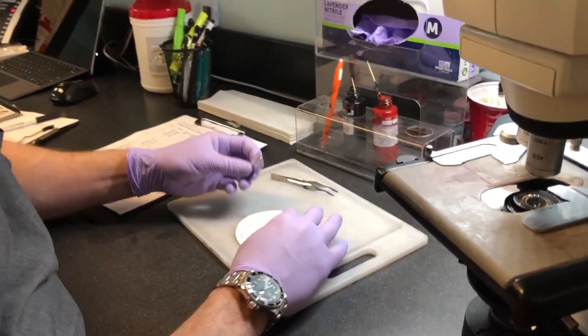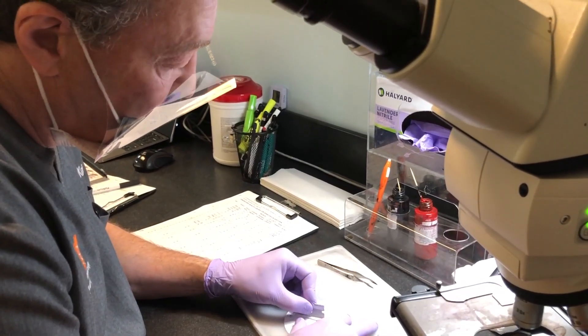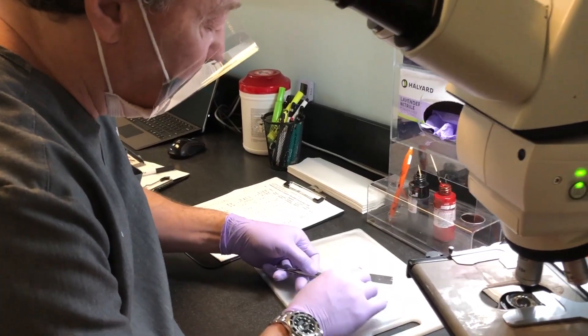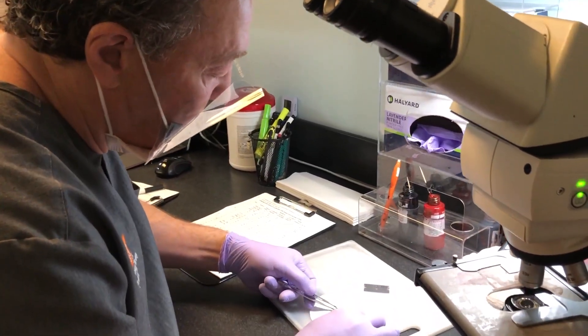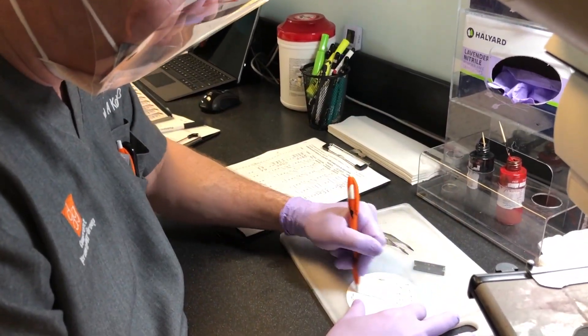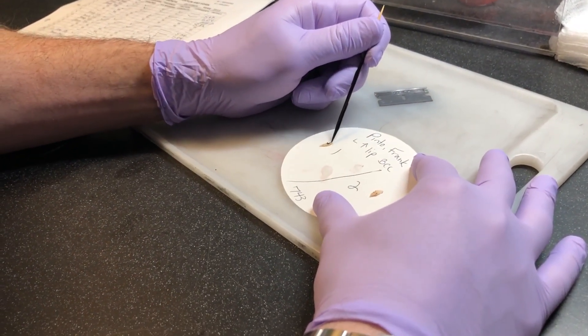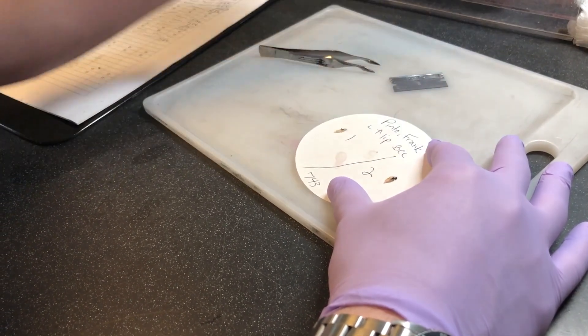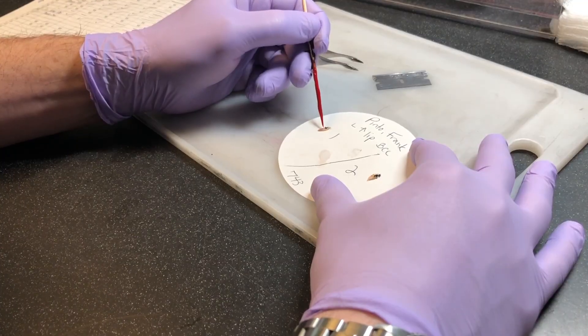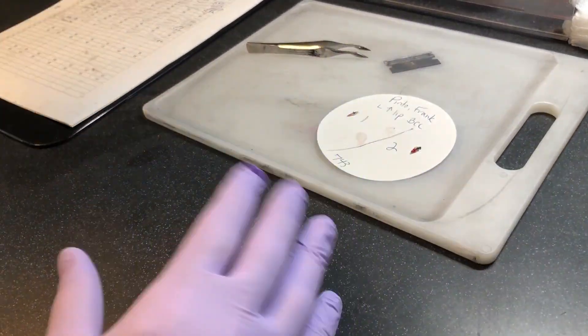So in the lab here, we will do what we showed on our map. We'll bisect the tissue into two pieces. These get turned over as we're interested in the underneath — the surgical margin. They'll be labeled piece one, piece two, like our map. Then we'll ink it like we did on our map: the top of piece one is black, the bottom of piece one and two is red. Then Brittany will take this tissue and freeze it and cut it and stain it for us. That'll take about 20 to 30 minutes.